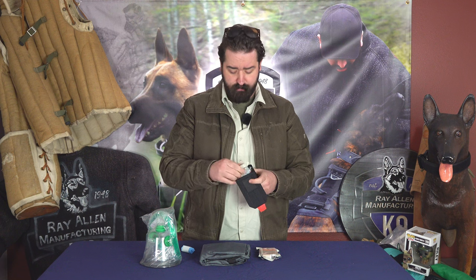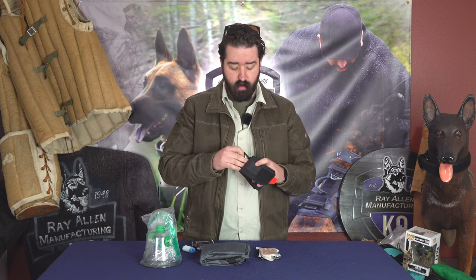The second one is this nifty little belt pouch. It comes with a couple of different things and pops out very quickly. It includes gloves — if you're dealing with a broken leg, blood, or excrement, you're going to need gloves. It has a SWAT-T tourniquet; normal tourniquets we'd use for humans do not work on dogs. SWAT-Ts tend to be some of the best, but listen to local professionals. It also comes with normal gauze and combat gauze so you can pack a wound.